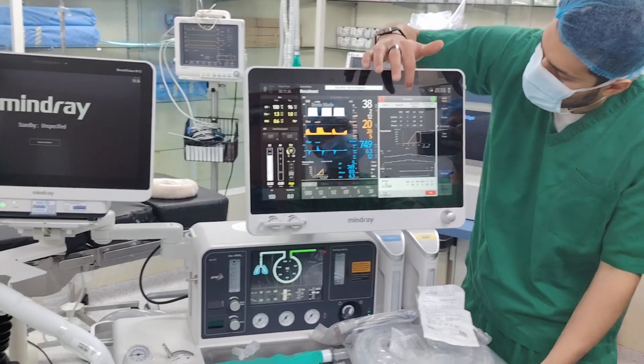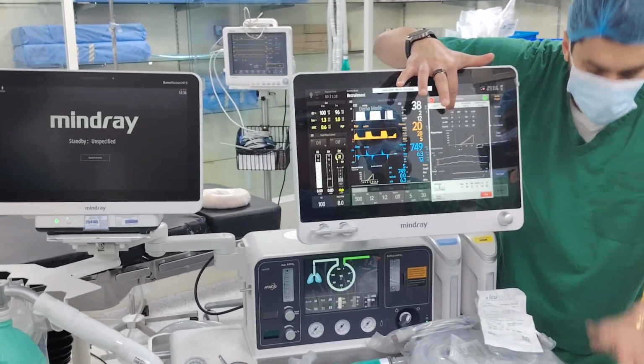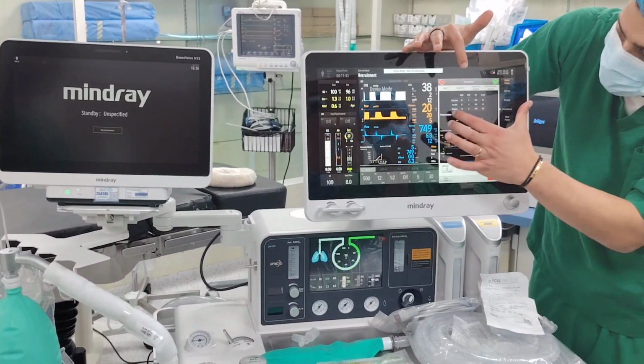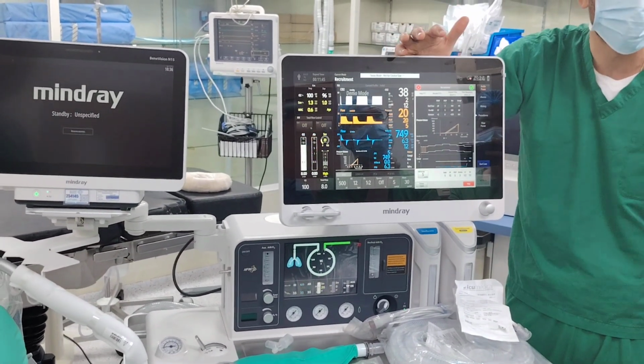Now what do I mean by that? So look now, you have here real time. You have pre-recruitment in the very, very beginning, and then you have variance. Who will find the difference? Okay?